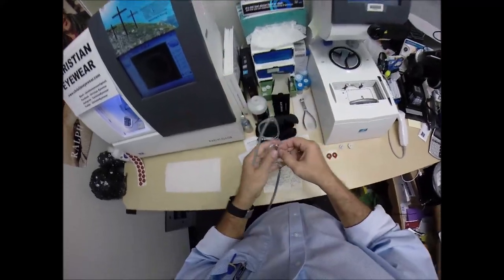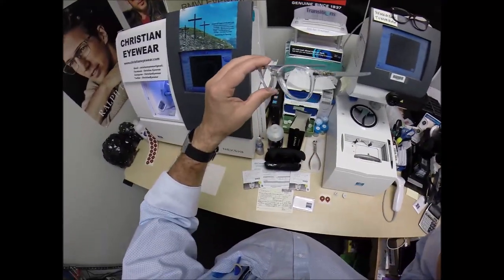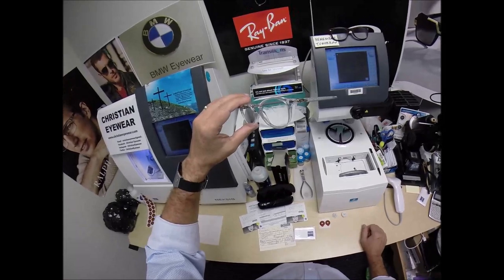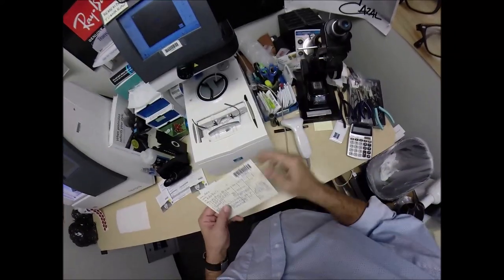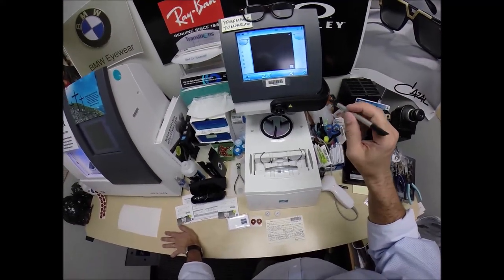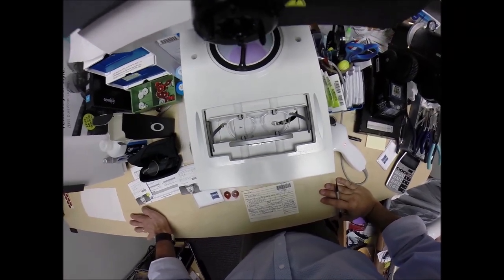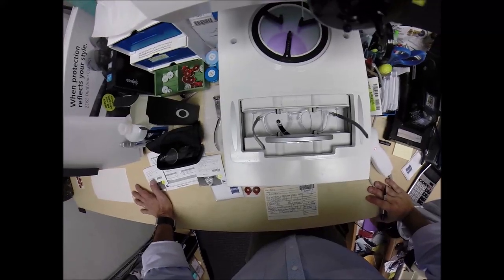I'm gonna pop out the original demo lenses. By the way, if you want one of these frames, I'm slowly getting Oakleys onto this website. If you click the shop page on the left hand side, there's a section that says categories. Click on Oakley where it says categories until we get them more prominent on the front page. I'm gonna put my frame into the tracing element of the blocker. First I've got to assign a barcode to this — your secret agent number 2962. That way I program the shape into the computer so that years from now, should you ever need new lenses for this frame, I can send the lenses right to your home.